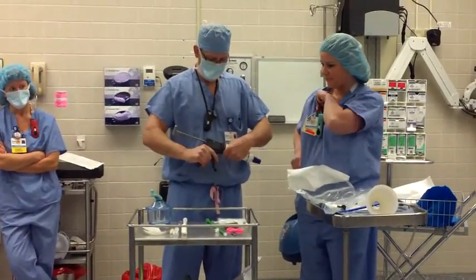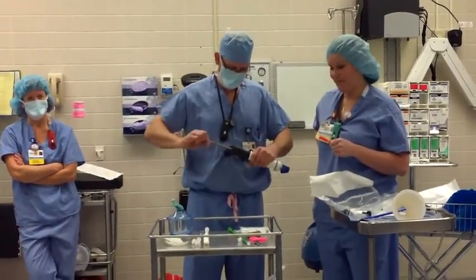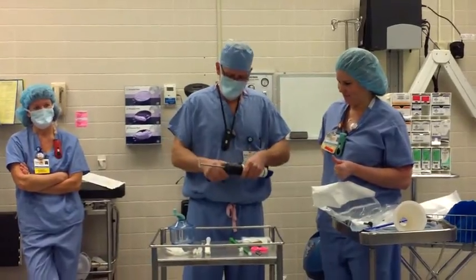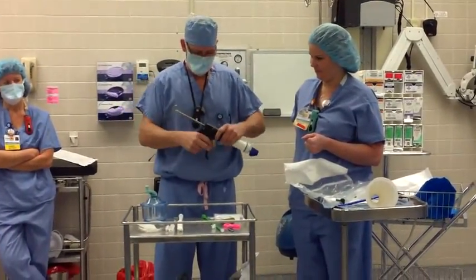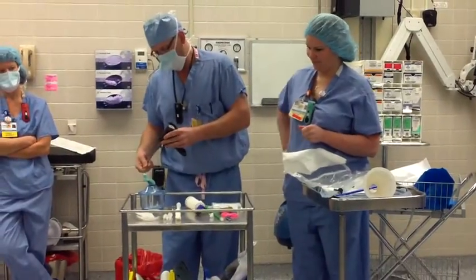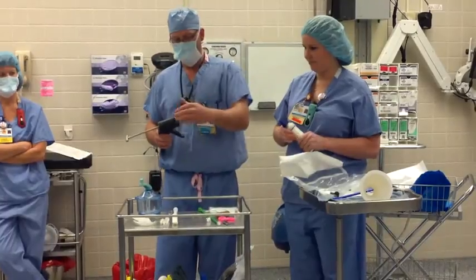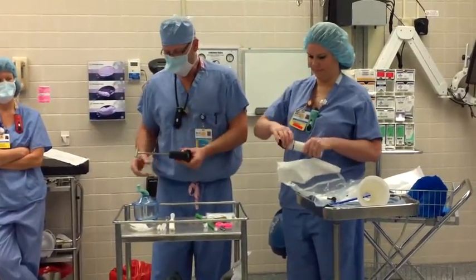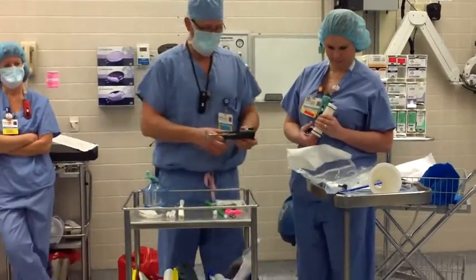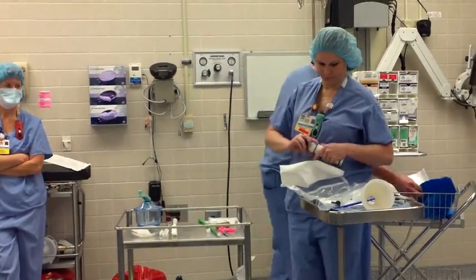Get the plunger out. If this isn't all the way out, that's when you have problems getting it out. Because even if it's just in that one little clip right there that's sticking out, it won't let this pass by here because it's a very tight seal. Even that little bit is all it takes to keep it from coming apart.